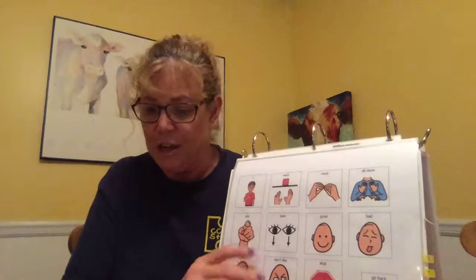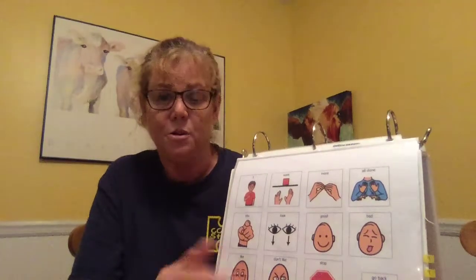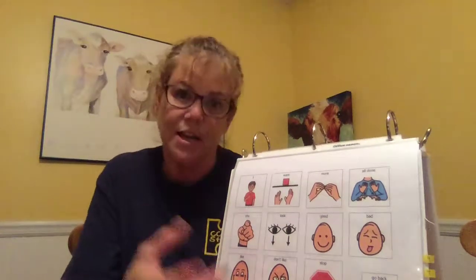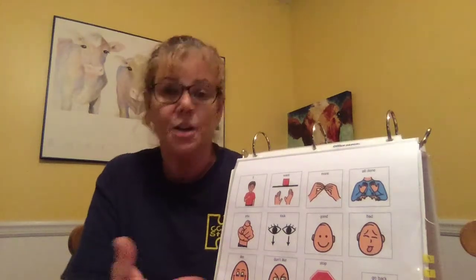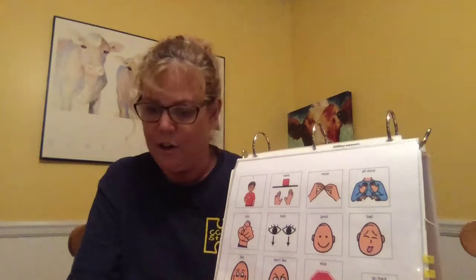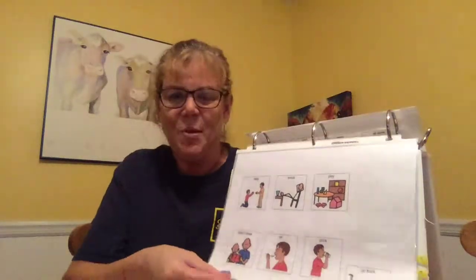From the information I gathered, a pod, even a beginning one like this, can be a useful tool towards building skills for more sophisticated communication systems, which can be added to this, and then this might transfer over to something electronically at some point for John, if they can figure that out. So this is a low-tech communication device I designed for John. I hope you like it.